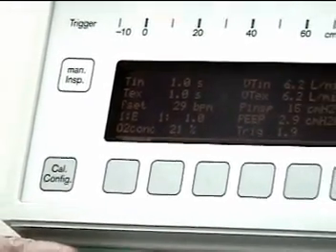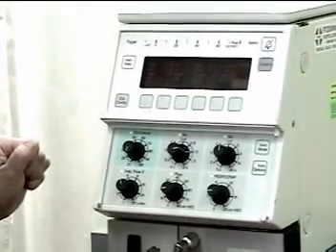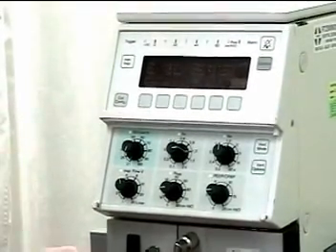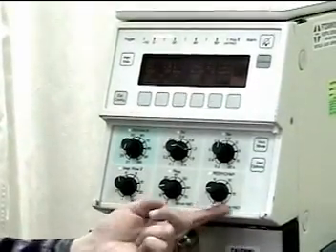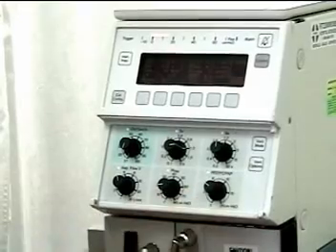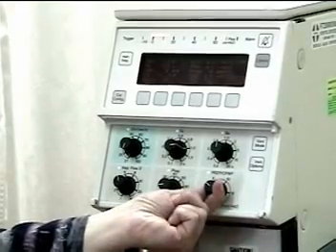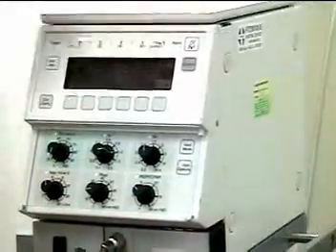Oxygen concentration at the moment is set at 21. I want a PEEP of 5, so I'm going to adjust the dial until I see a setting of 5.